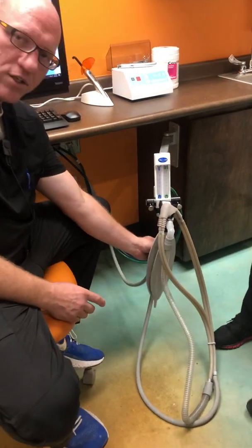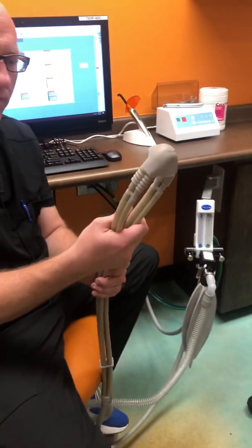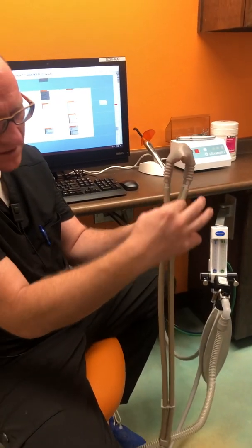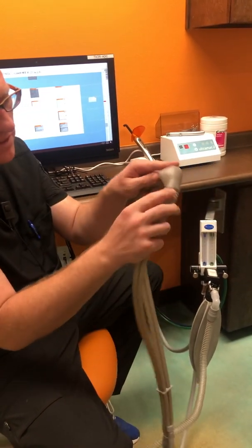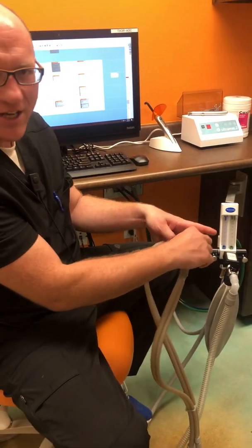The gray comes underneath where our suction system is, and all of those eventually lead out into this. We have our hoses that come in — the small tubes are the gases that are mixed together, and the big one is our suction that comes out. All that goes into the hood, and this is the point of excitement where everything comes flowing in and all the action takes place.